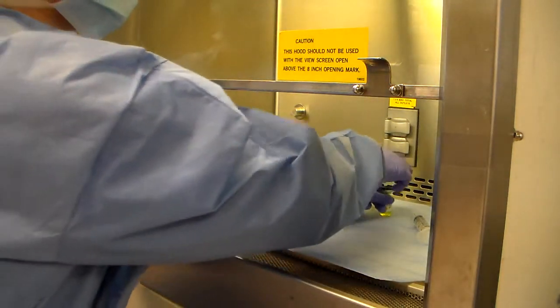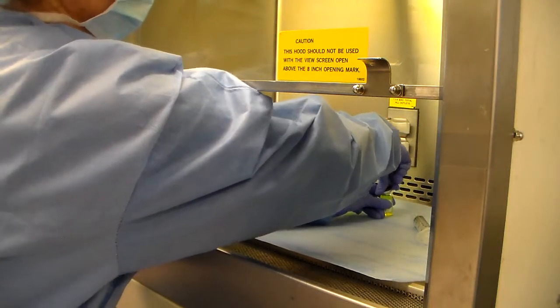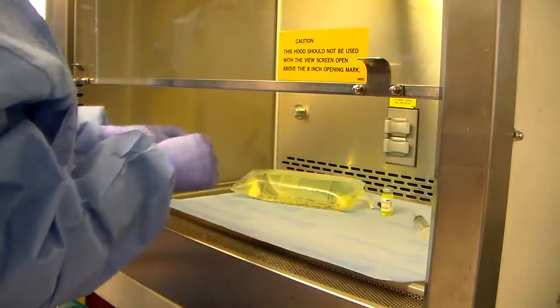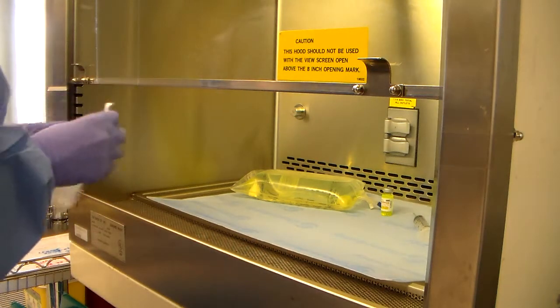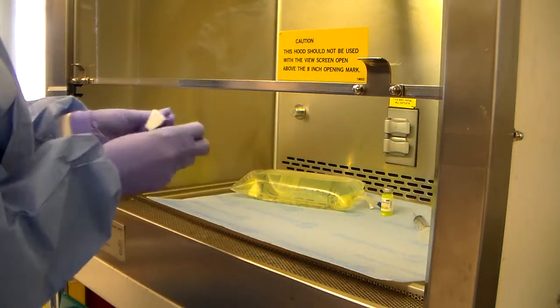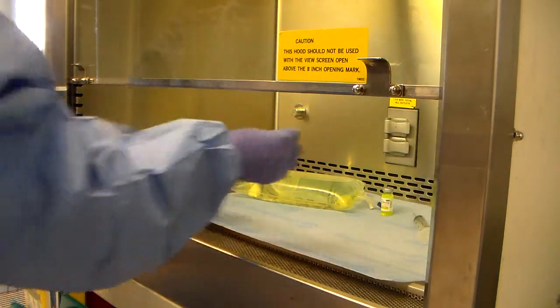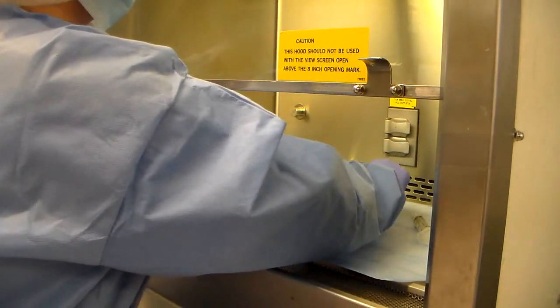First, I have to take the top off. Same thing. Take it off towards you. Now I can go ahead and clean it. Wipe towards you.